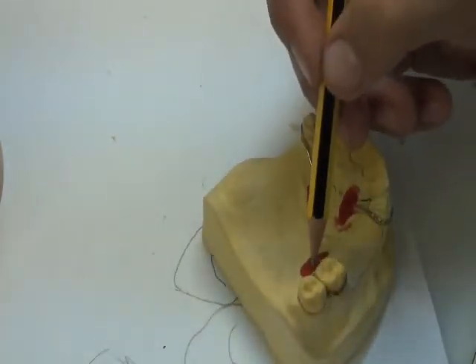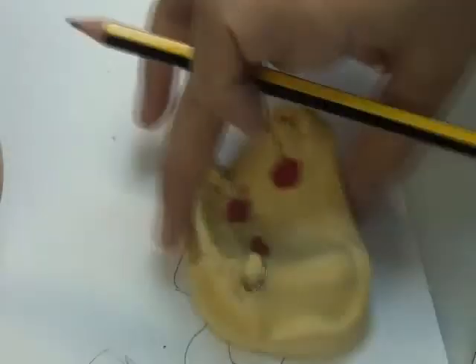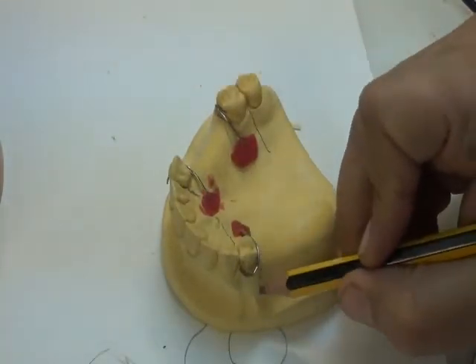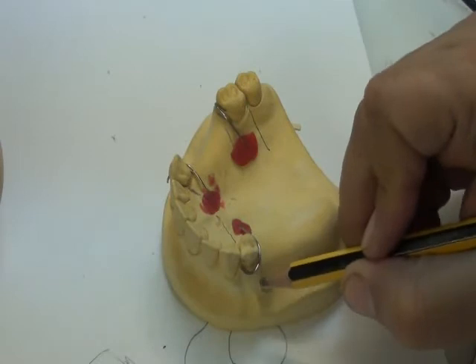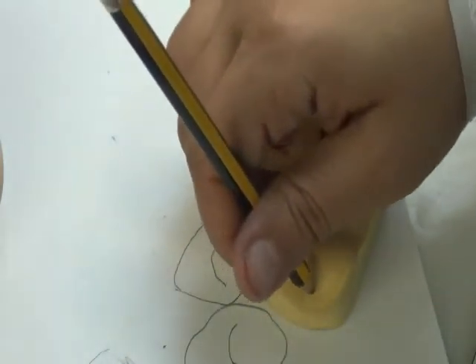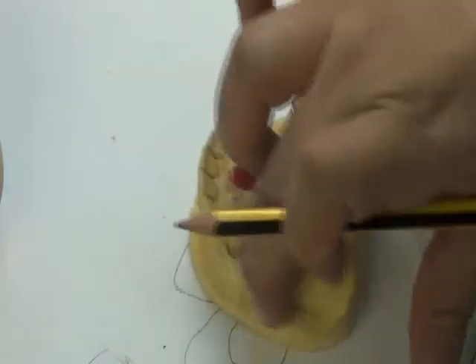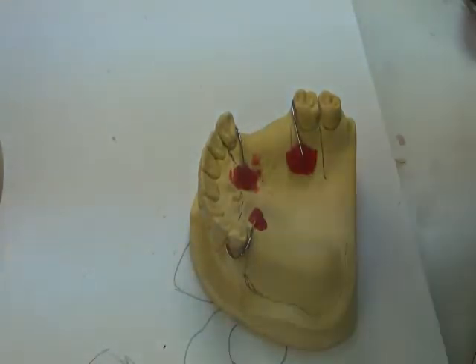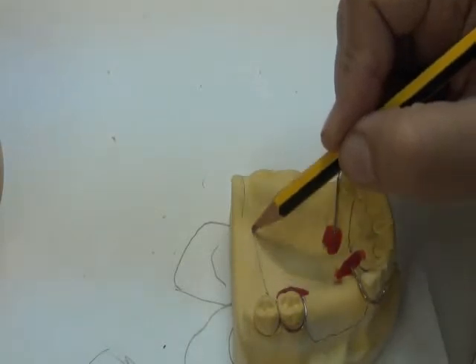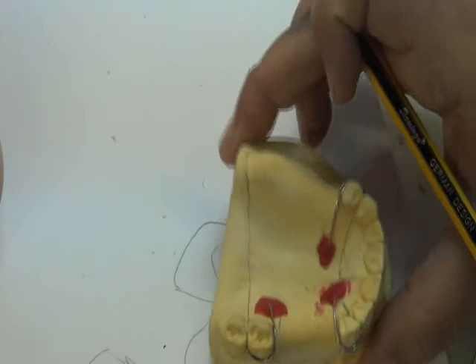This is an abutment with a clasp. I extend the acrylic up to here. This is a free end saddle area. On the side of the tooth, I follow the same rule. I go down vertically from here with a round angle. I round this out. And then on the saddle area, I follow the denture rules, which is that I do not go beyond the border areas. So I do trimming inside the mouth. Remember that. And now these two lines, I join them together. This is my extension. Okay? This is for your cast.